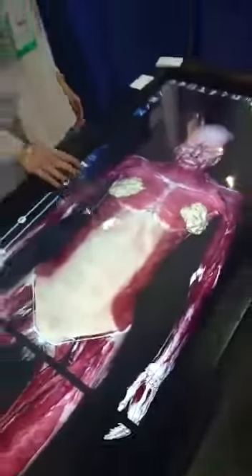I can start off by going down the middle, and from here I can show the anatomy as it was at the time of death. So everything is accurate, there's no rendering done. Since the cadaver was flash frozen, scans were taken of the cadaver itself, and from there you can see the anatomy as it was at the time of death.